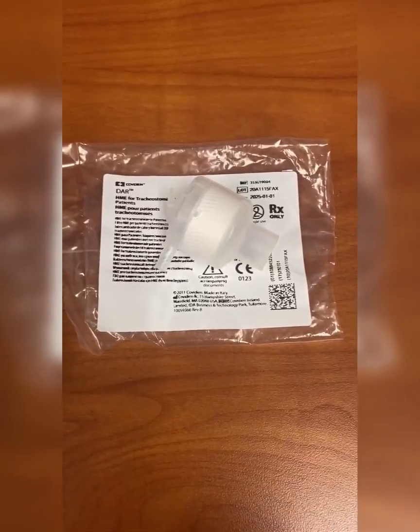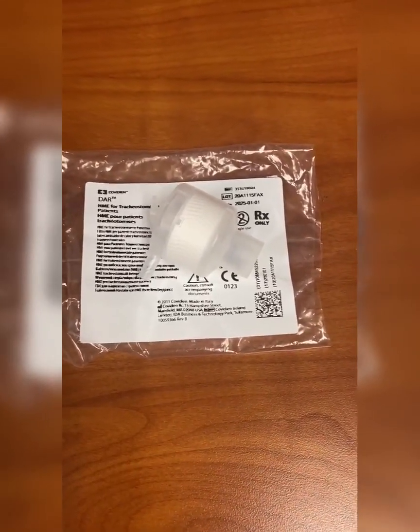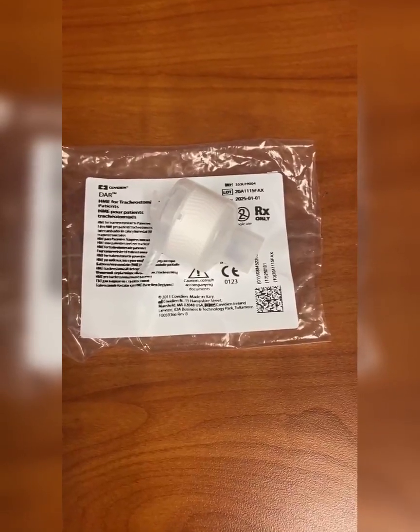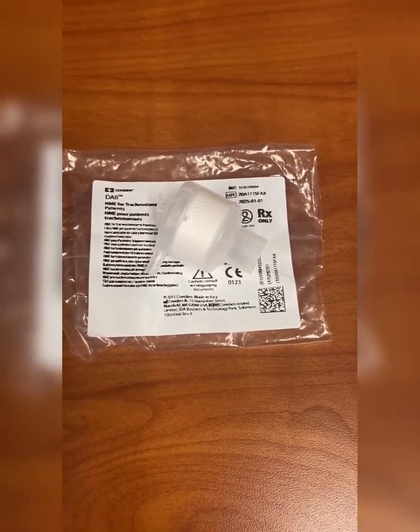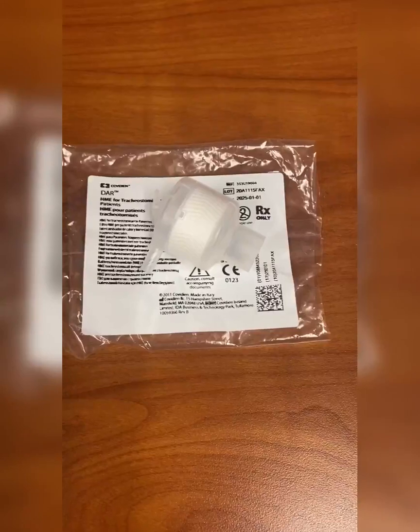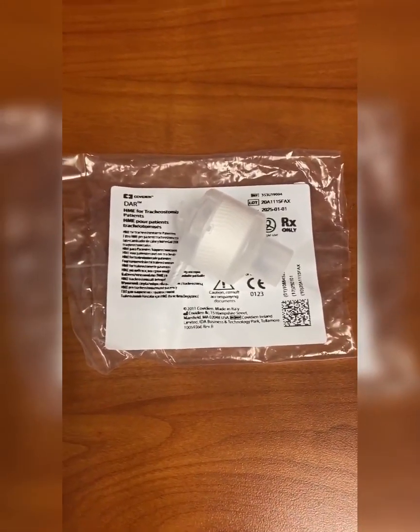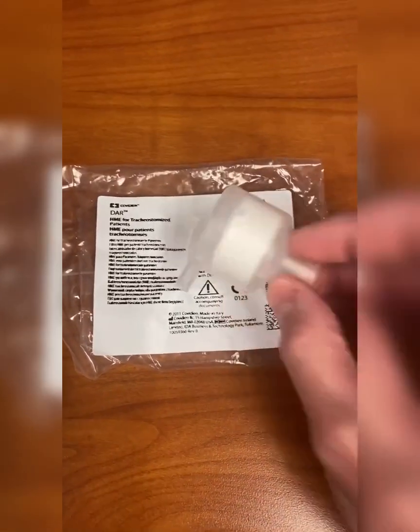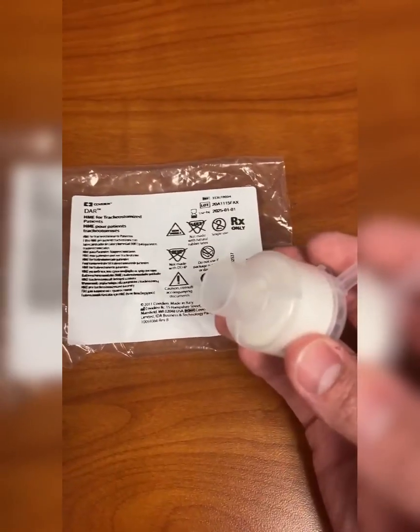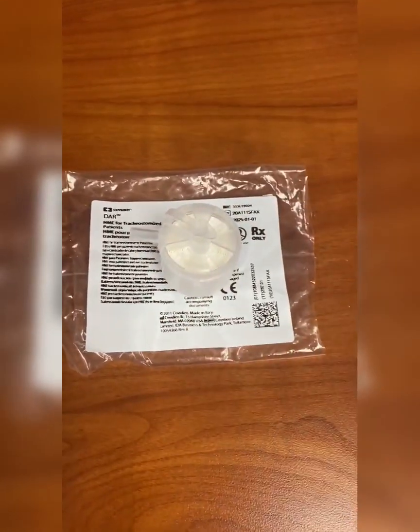The next device is an HME for your trach patients. So if for some reason you wanted to remove your patient from the cool aerosol — whether because the patient needs to ambulate or they're not tolerating it — this is a little bit more flexible for your patient. You can attach this directly to the trach on this end, and this will add that heat and humidity.